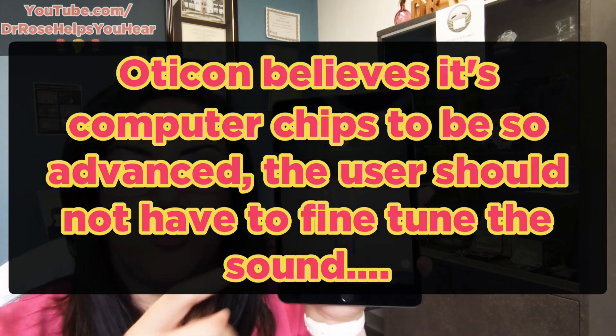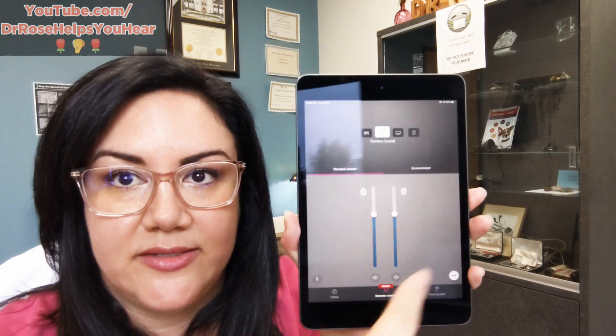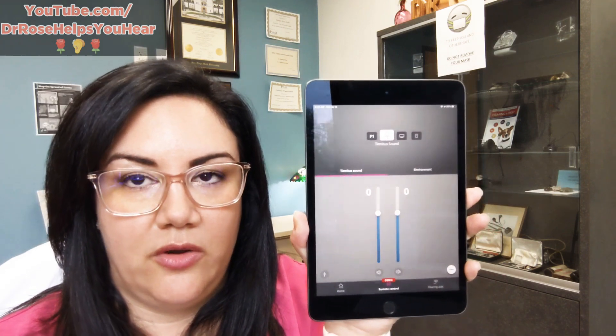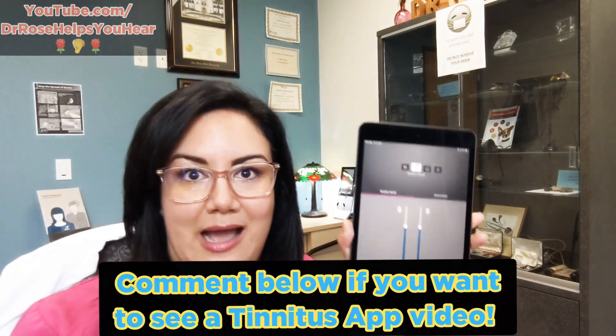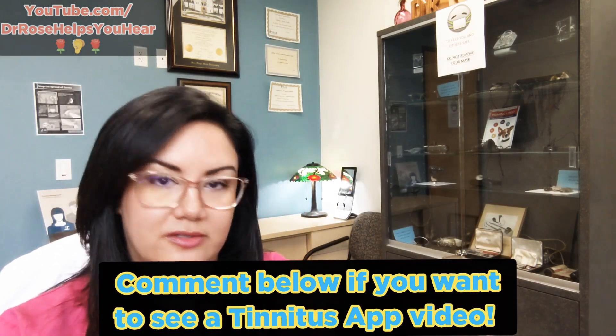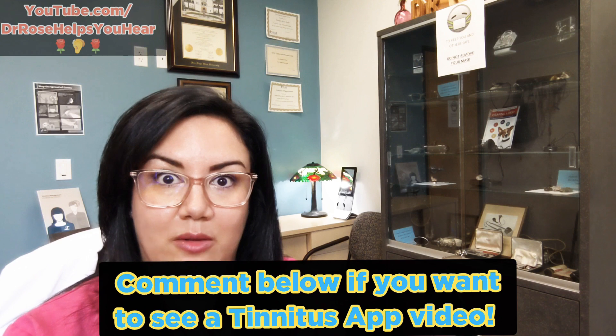The tinnitus program is really nice and I plan to do a whole separate video about tinnitus applications, so just know that this app does have that available.